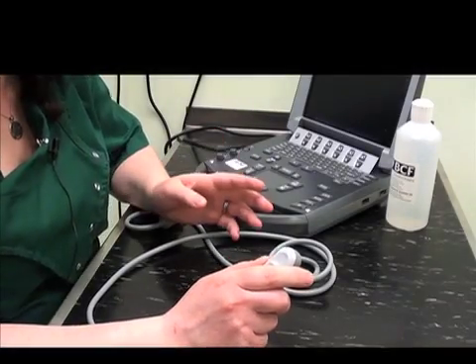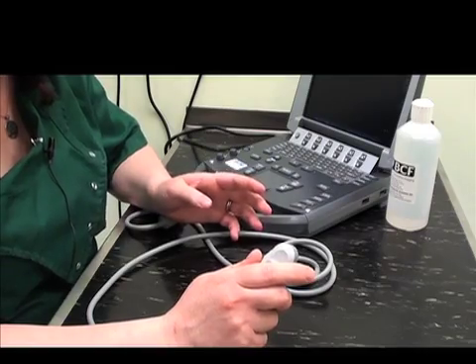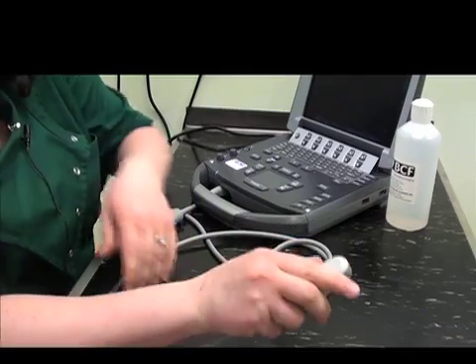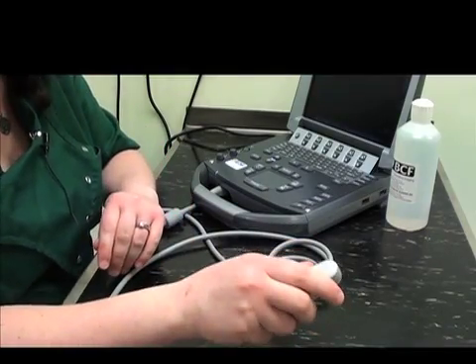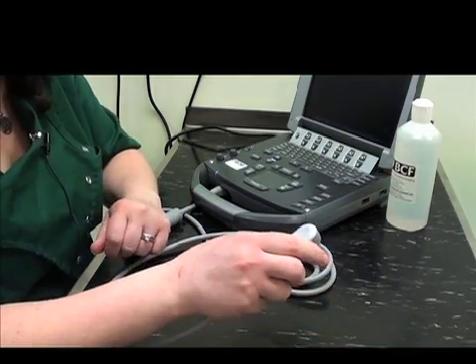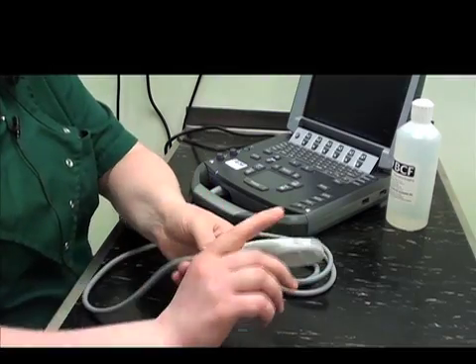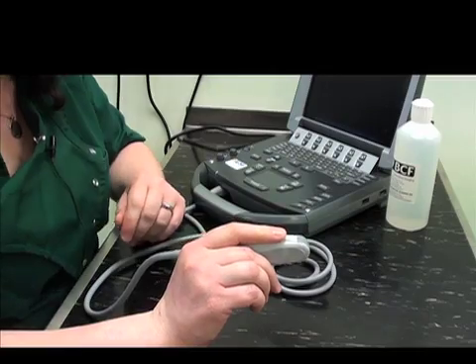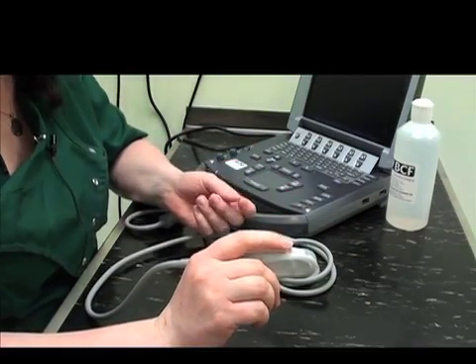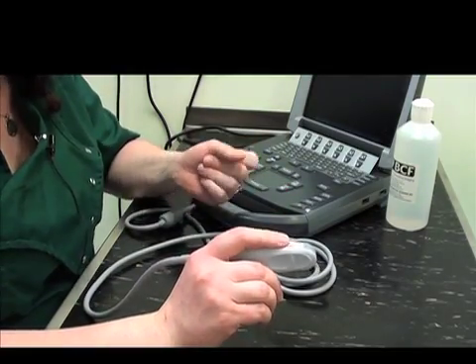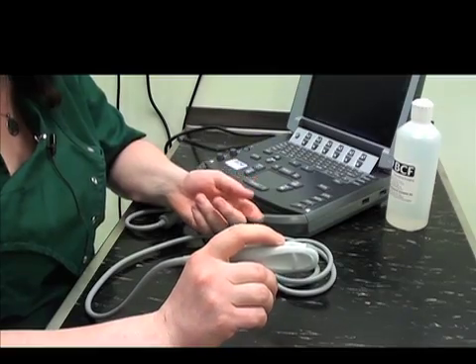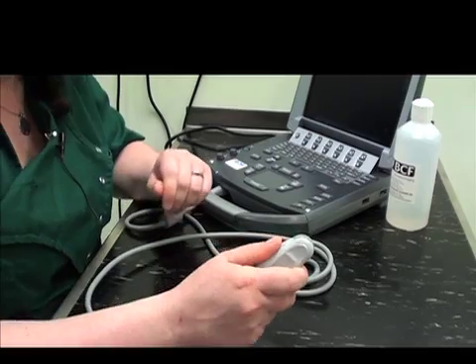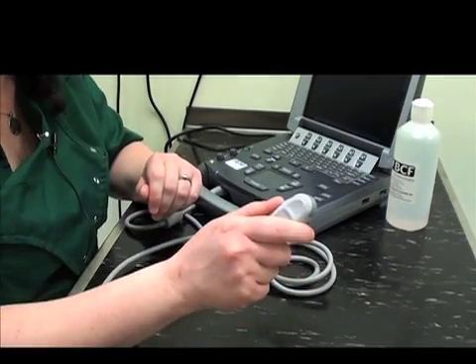There are two basic grips that you can have on the ultrasound probe. The first is placing your thumb on the marker and grasping it lightly with the remainder of your hand. The other grip is the pencil grip. That's where you put your index finger in the groove near the marker. Whichever of these grips feels most comfortable to you is the one that you should use, and you might actually use them interchangeably throughout the entirety of the abdominal ultrasound exam. Most of the time, I prefer to use this grip.